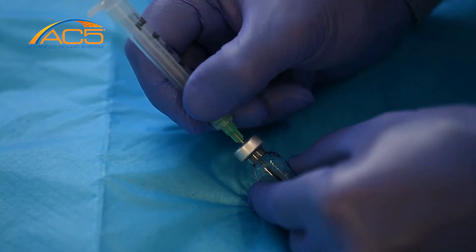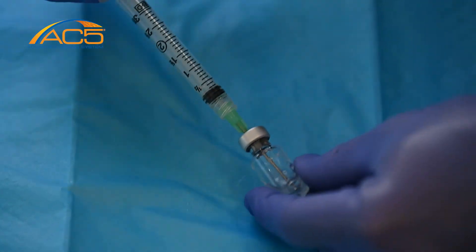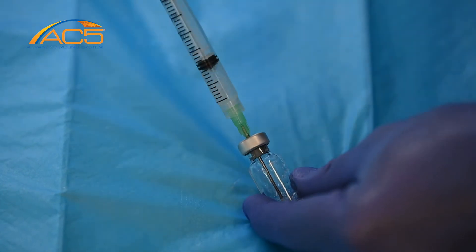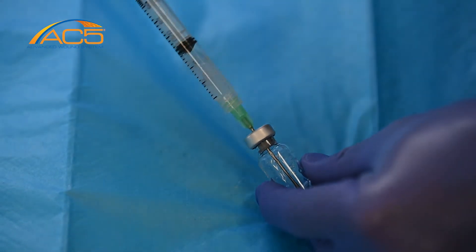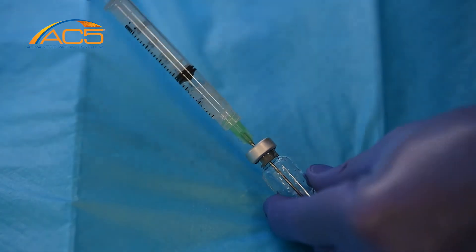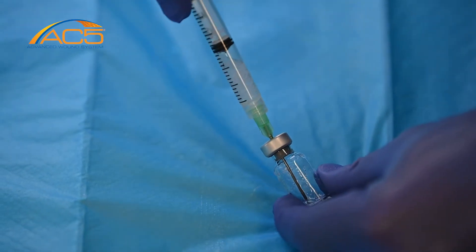Without waiting, promptly draw the peptide solution into the syringe using a slow, firm aspiration technique. Flick the vial sides to help the solution flow to the bottom.